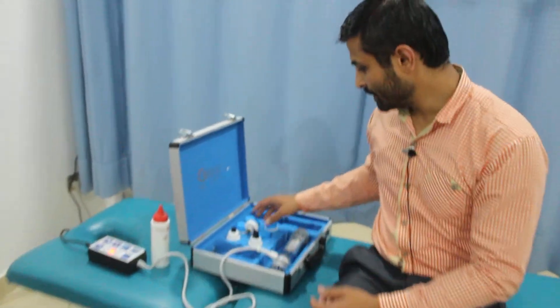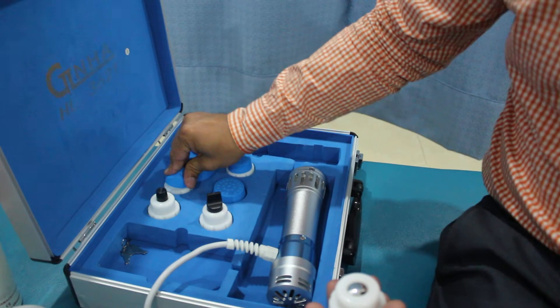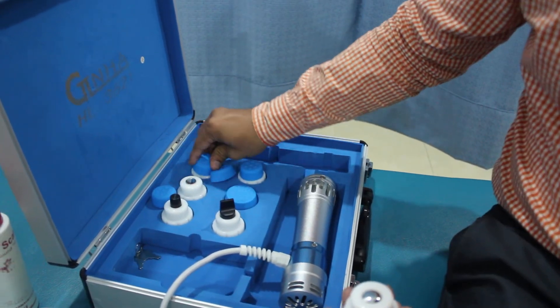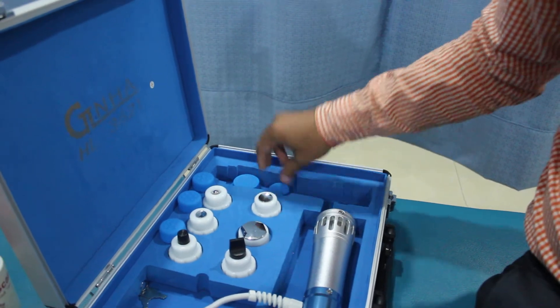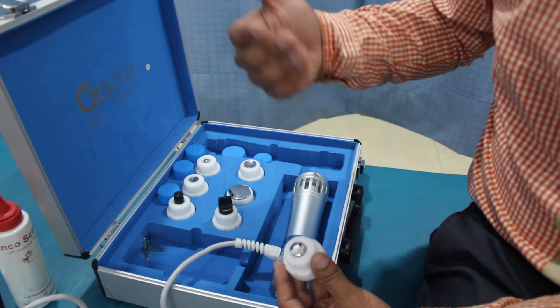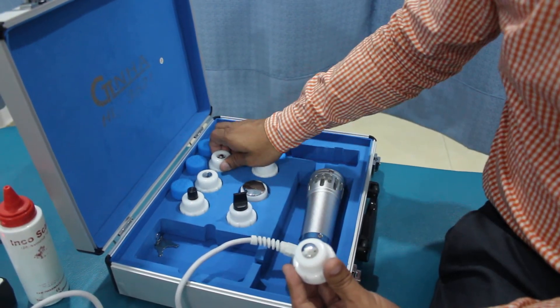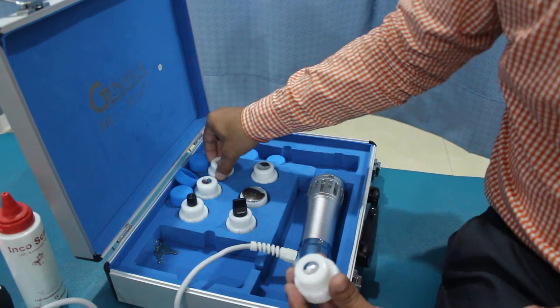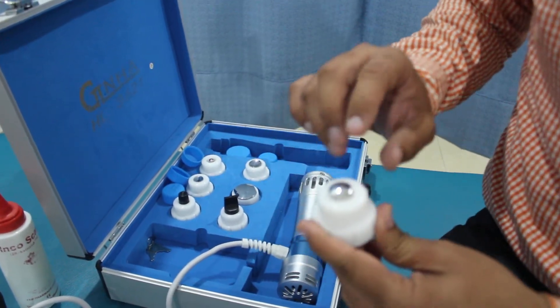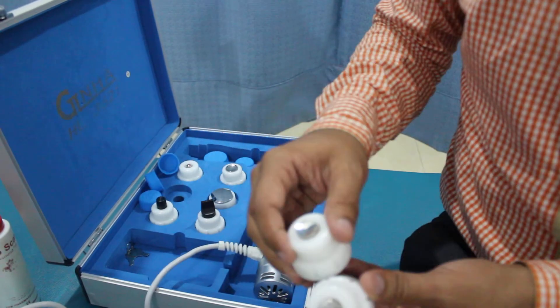First of all, we need to select the most appropriate attachment. There are various attachments — these are the standard attachments. I'm about to remove the silicone covers just to show you which particular attachment is most suitable. Remember the formula for pressure: whenever the area is reduced, there will be more pressure. So comparing these two heads, this one has a smaller area and will create more pressure compared to this one which has a larger surface area.